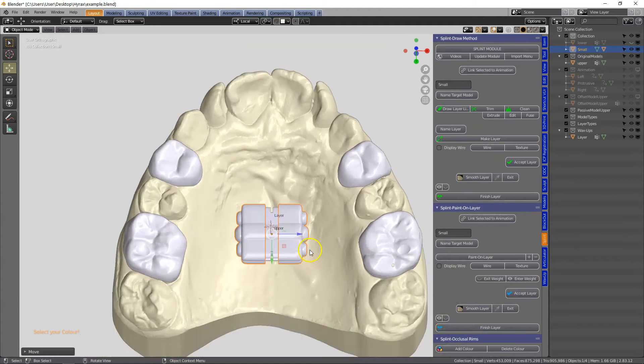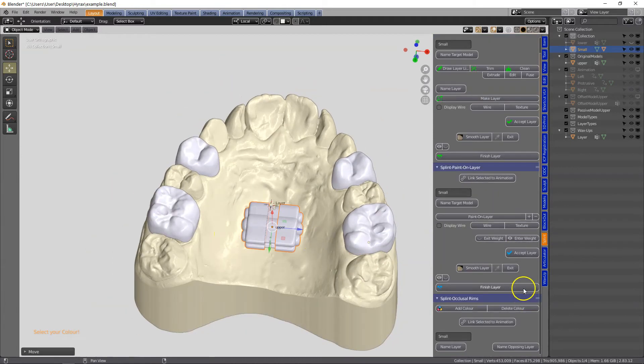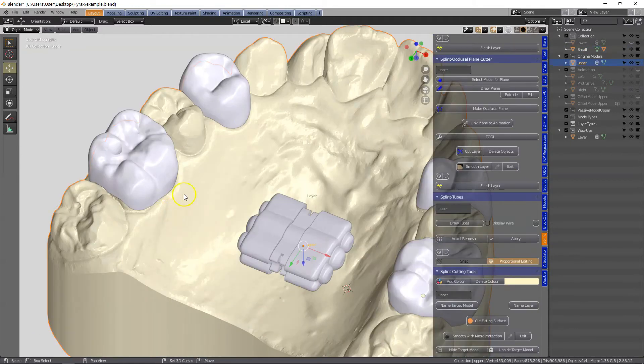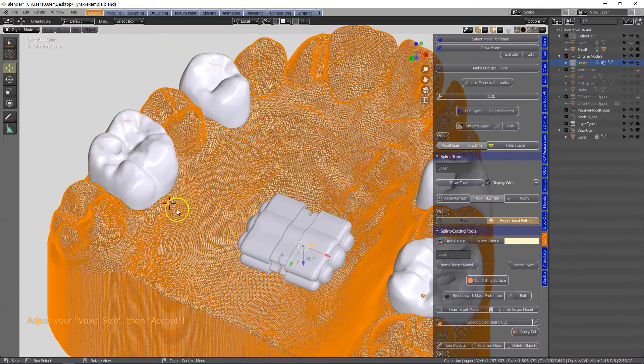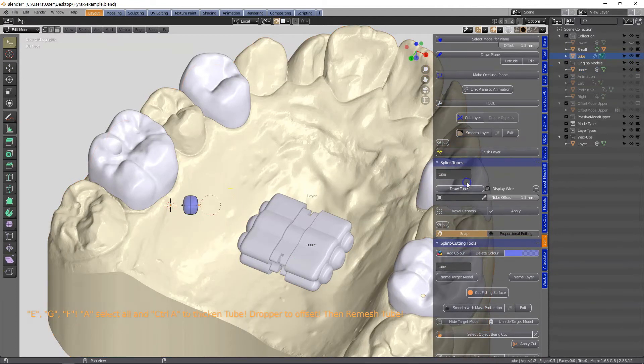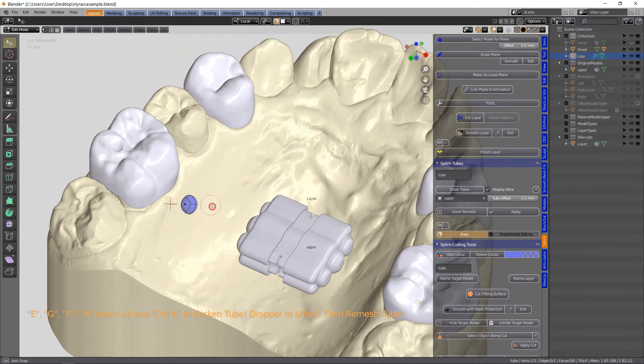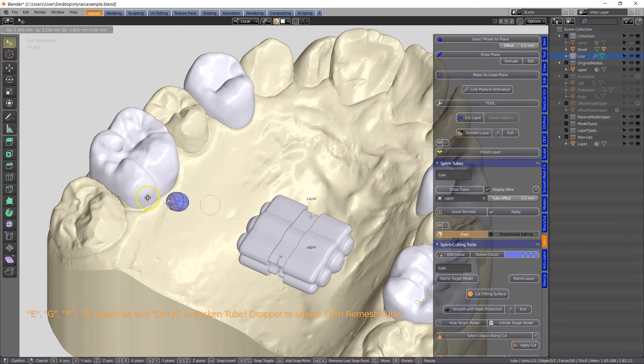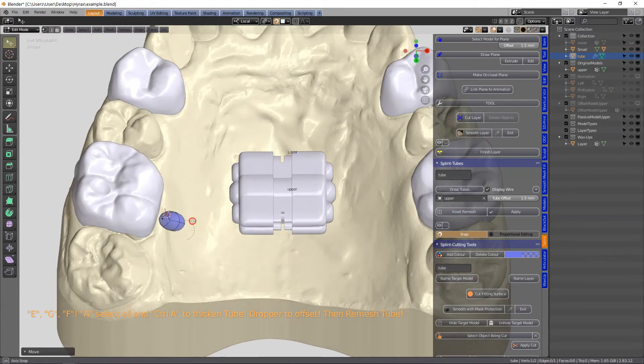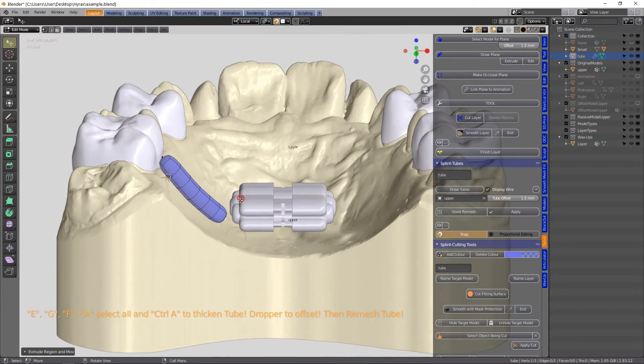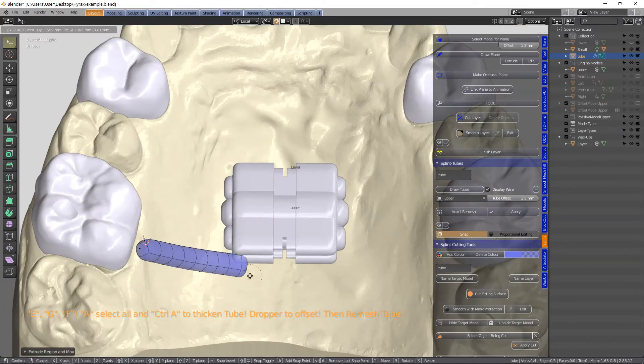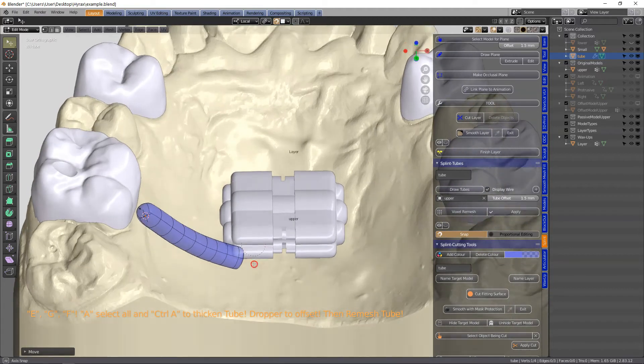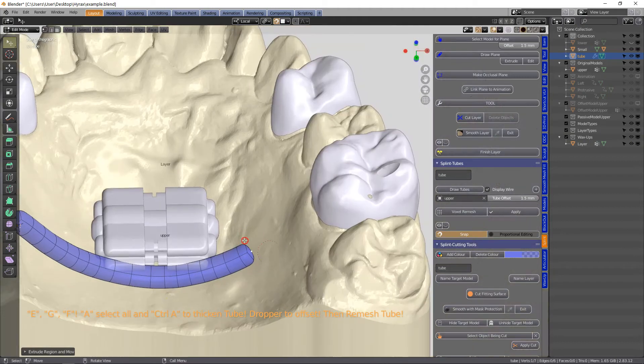So I'm not an expert in how to make these and where to place them but you'll get the idea. Then in the splint module we're going to draw tubes. Make sure that you are selecting the model to offset this tube. And for this video I'm going to be making one tube design across the entire section.